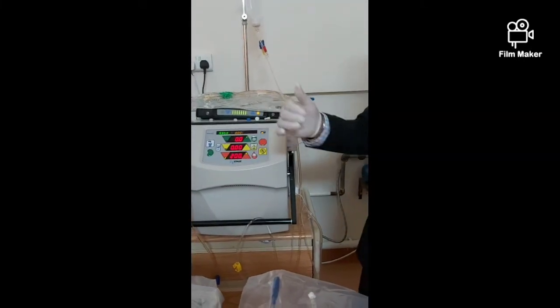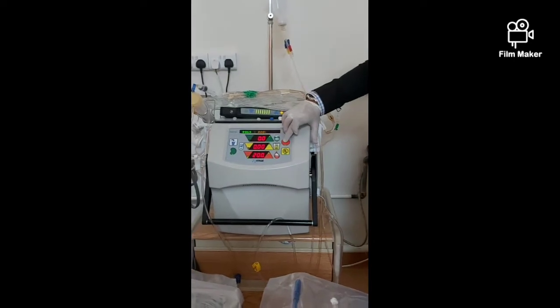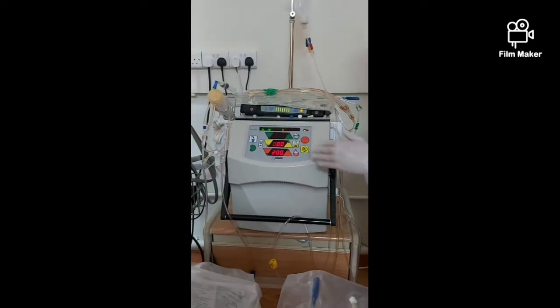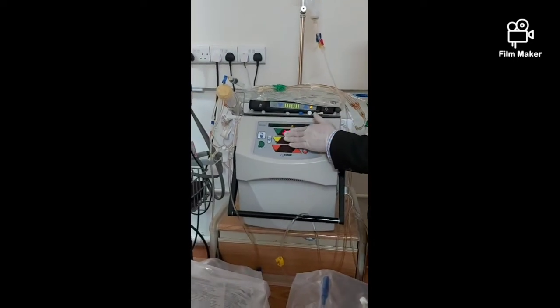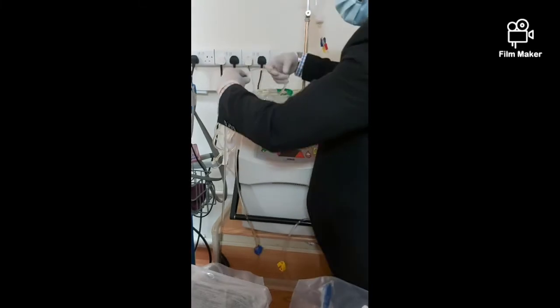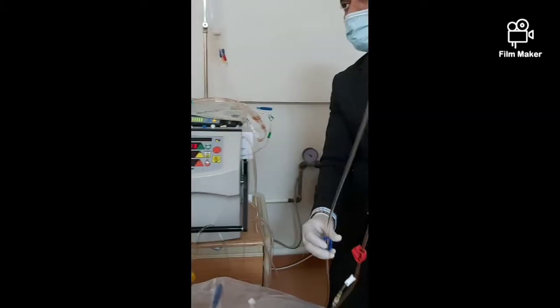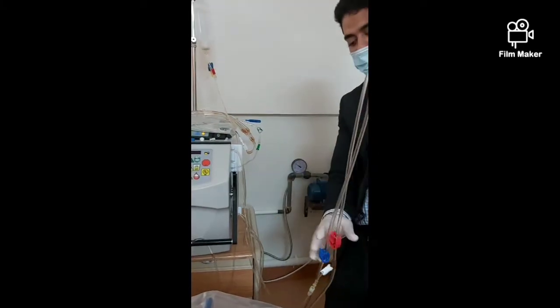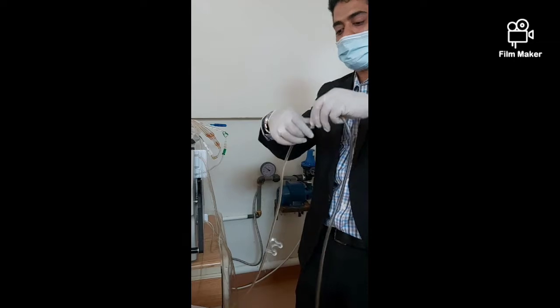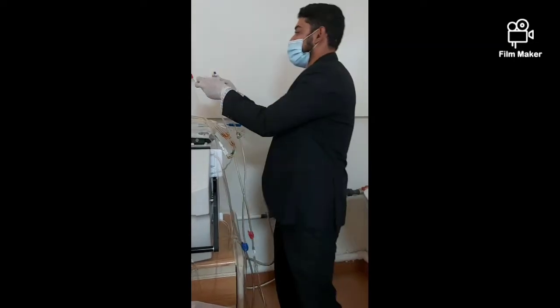When the patient comes back, stop the pump. Take both lines and connect them to the patient, then start. So the procedure is: stop the machine, take the patient lines, connect to the patient, and start. The machine resumes treatment for the patient.